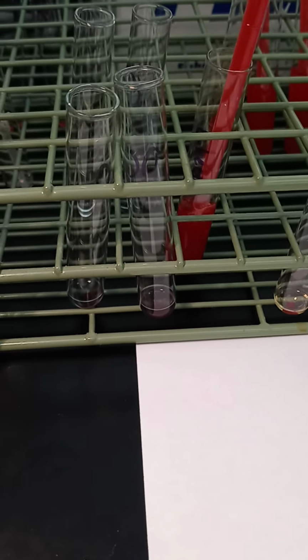Okay, and then the last question of the quiz will be your ABO Rh interpretation. And this is a lab grade for this class.